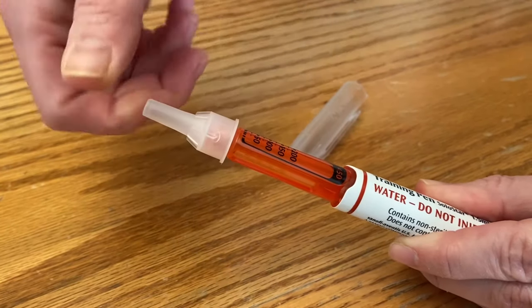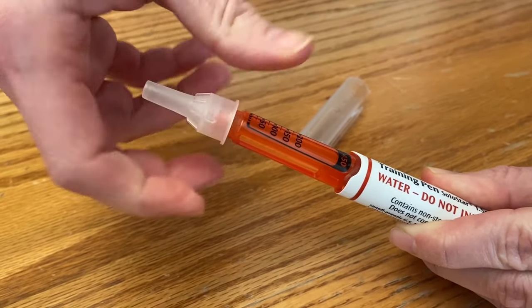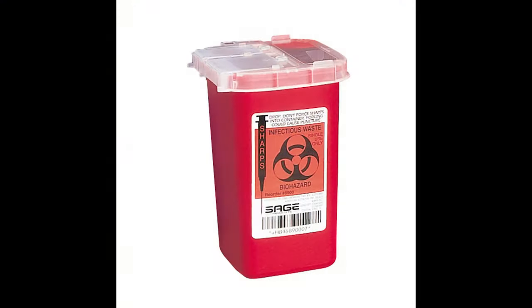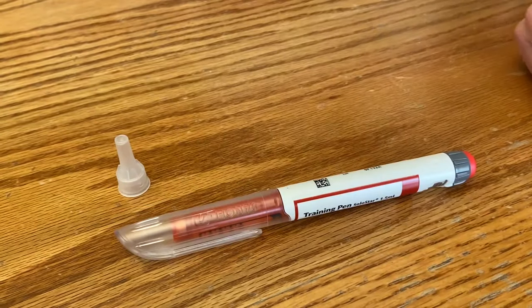When you're done, it's time to remove the needle. Place the large clear cap back on the insulin pen. Untwist the needle in the other direction until the needle comes completely off the pen. Then properly dispose of the needle in a plastic, puncture-proof container with a lid. Finally, place the cap of the pen back on and safely store it.